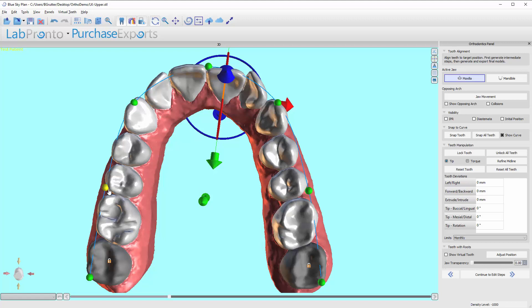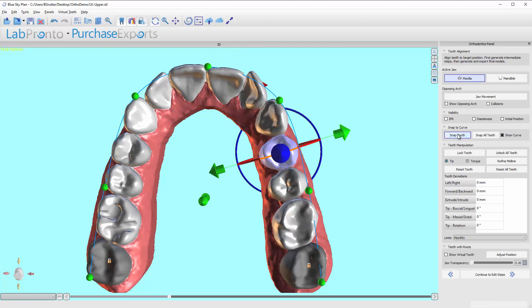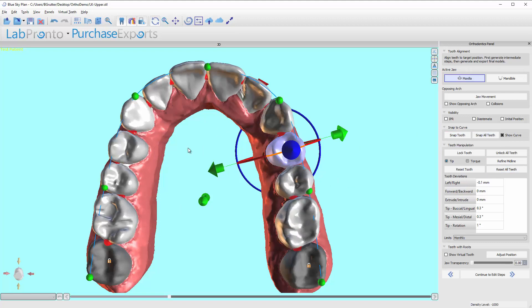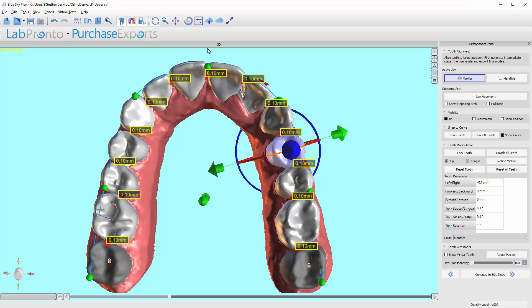To keep things symmetric, keep the anterior-posterior position of the nodes relatively consistent — I'm just on the distal edge of this second premolar. For the canines, if you want a broader smile you can bring these forward, but make sure you bring them forward the same amount. Once I have the curve positioned where I want, I can snap one tooth to the curve or snap all teeth. When I press the IPR button, all the IPR values are approximately the same — within about 0.5mm.